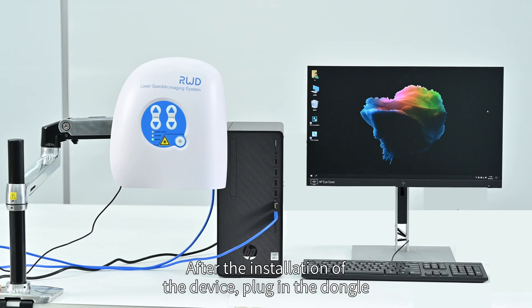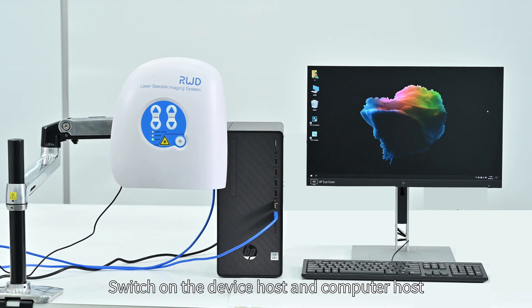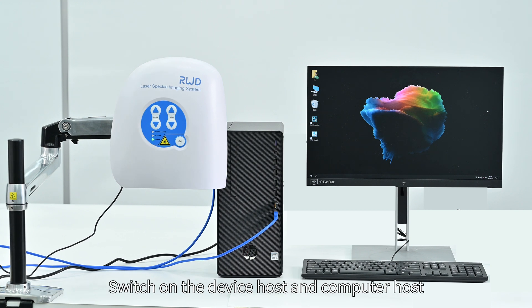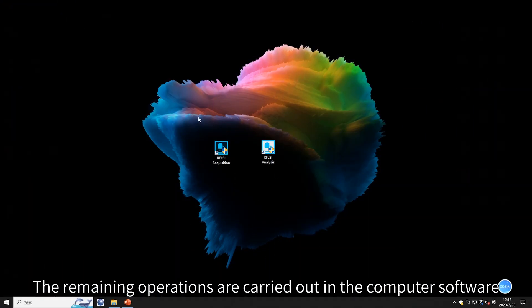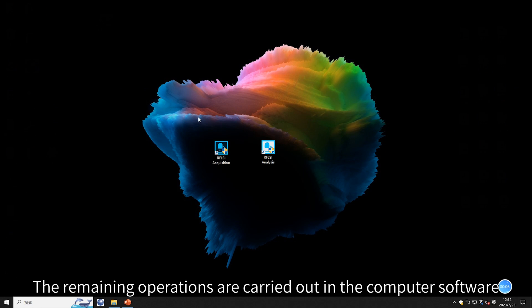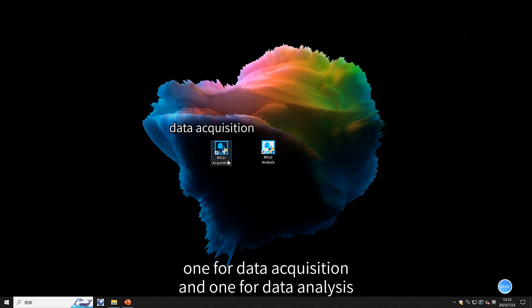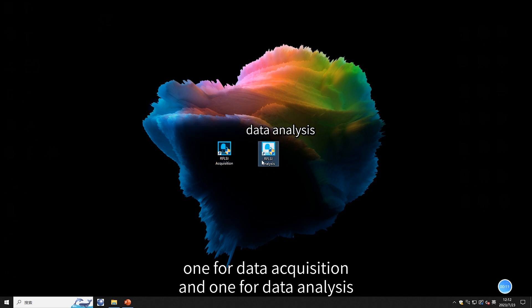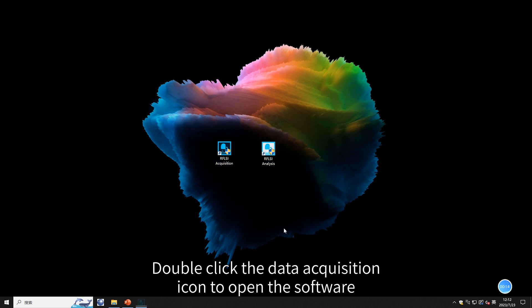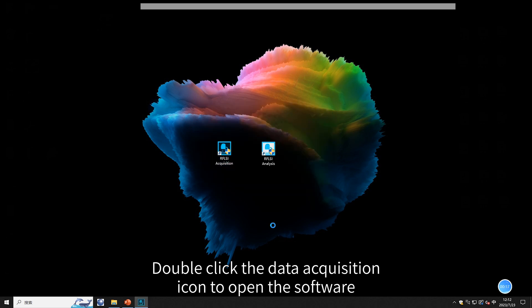After the installation of the device, plug in the dongle and switch on the device host and computer host. The remaining operations are carried out in the computer software. There are two software icons on the desktop: one for data acquisition and one for data analysis. Double-click the data acquisition icon to open the software.